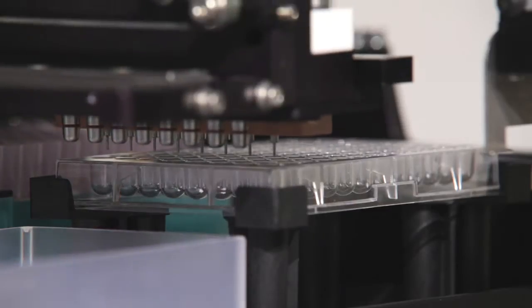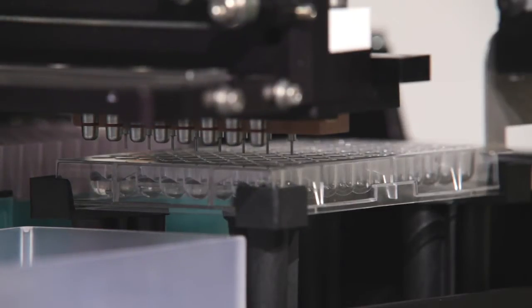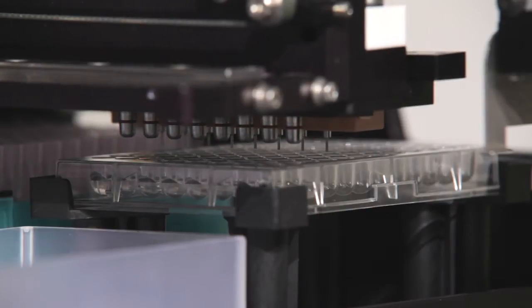In a first step, the Precision XS enables an automated pre-filling of the Micronaut AST plates.